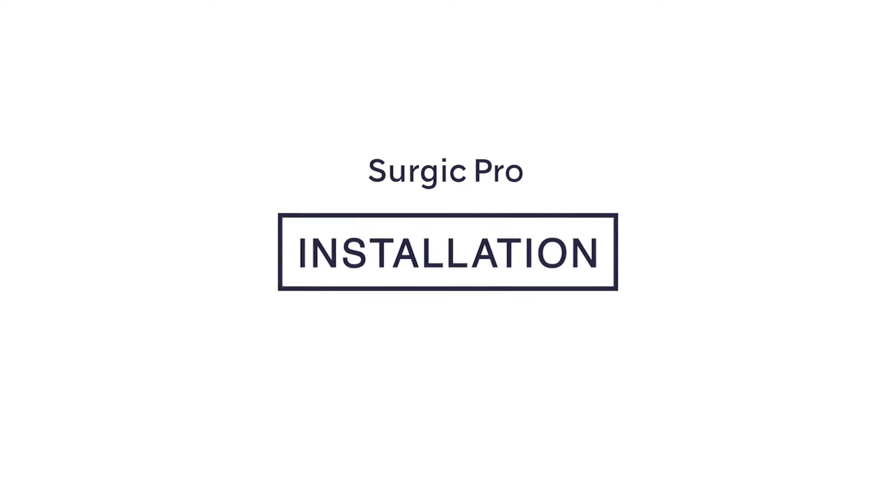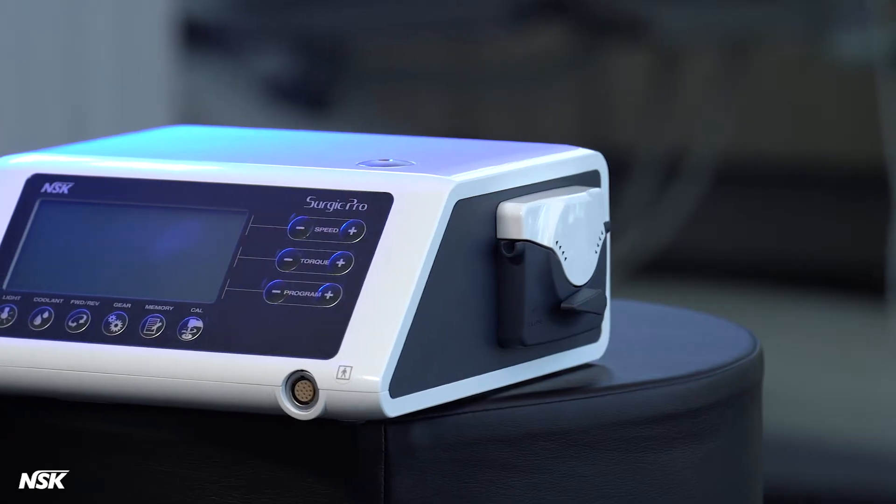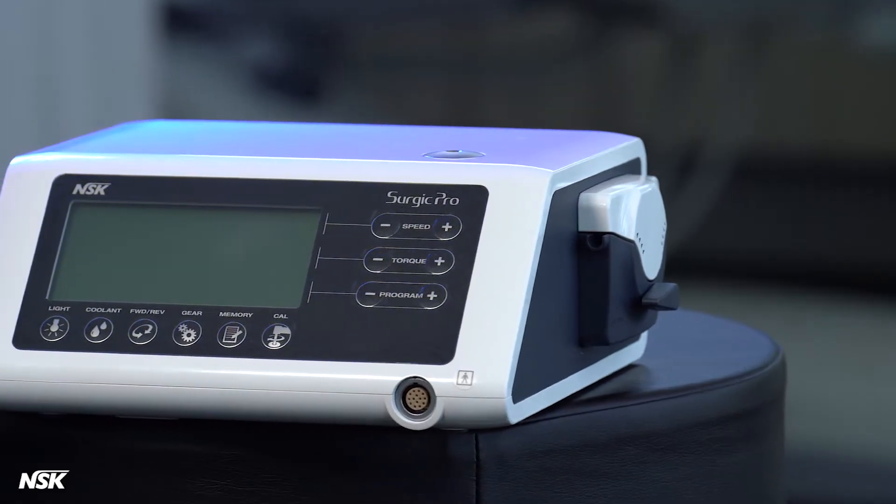NSK Surgic Pro Installation. Now, let's move on to setting up your Surgic Pro.